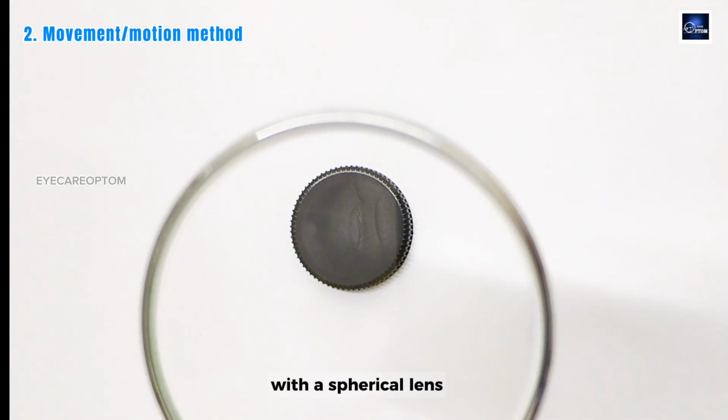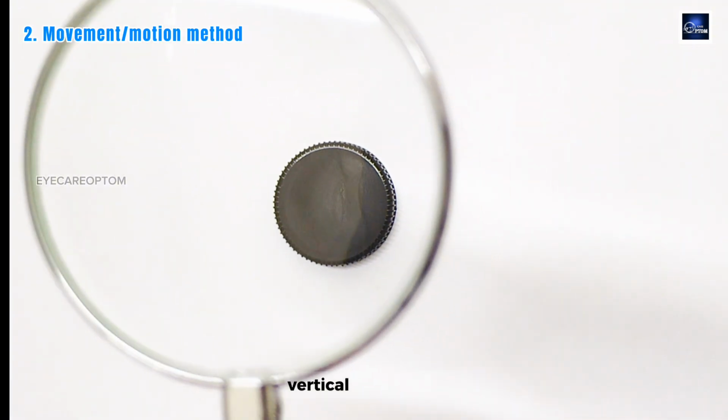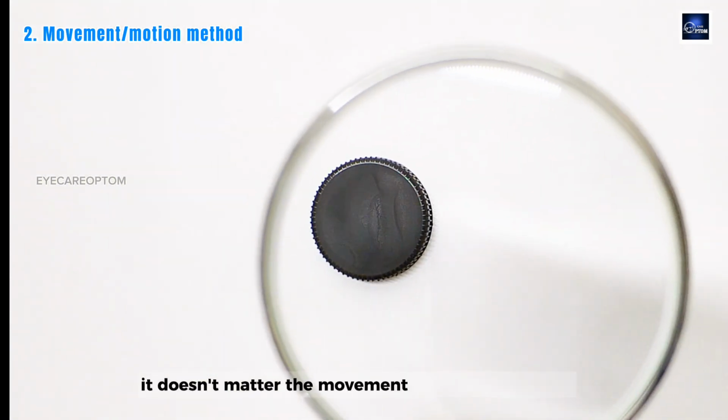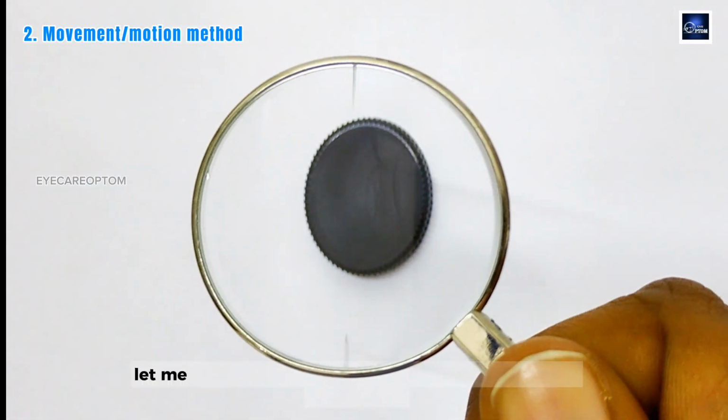With a spherical lens, the movement is the same in every direction you move it. Horizontal, vertical, diagonal, it doesn't matter. The movement begins identically. With a cylindrical lens, this is different. Let me show you that.